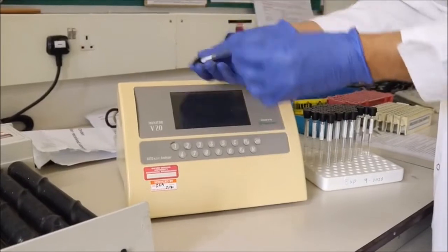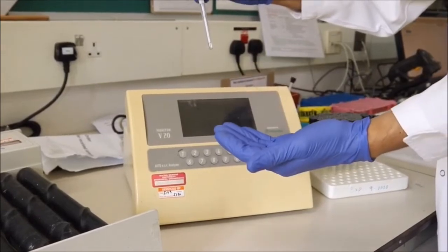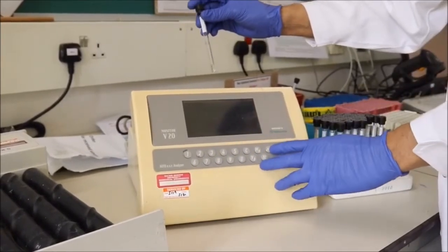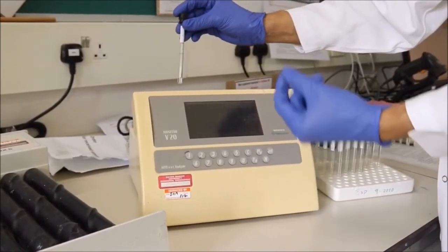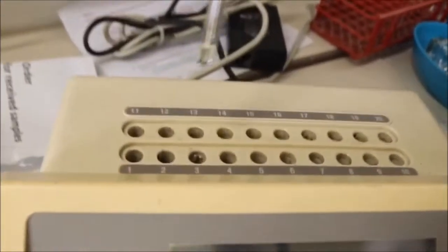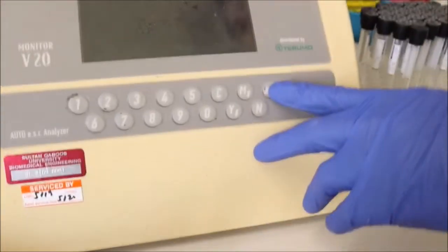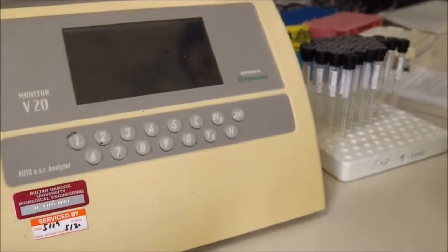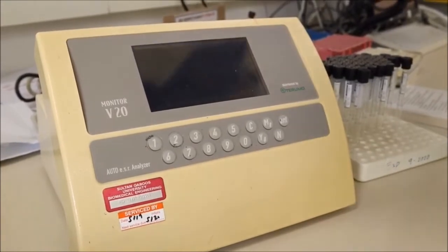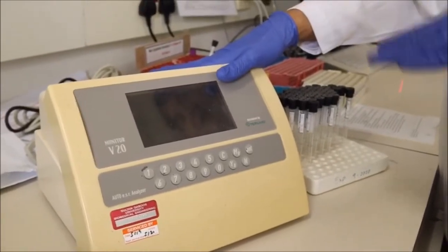Once you have the sample, mix well, and then enter the barcode number or the identifier of the sample for that particular patient. Once you enter it here, just press enter, and it will show you which position of the tube, or the location of the sample, and then you just press enter and it will do the test. Normally, with the old method, we have to wait for an hour for the red cells to settle at the bottom of the tube. But with this machine, it will only take about 20 minutes and the test is finished.